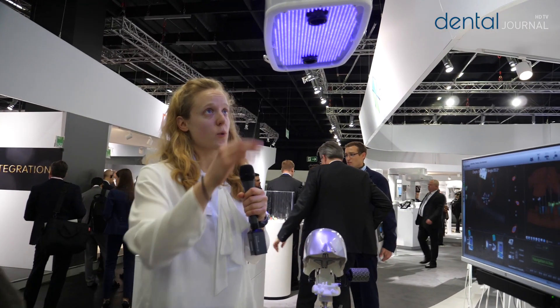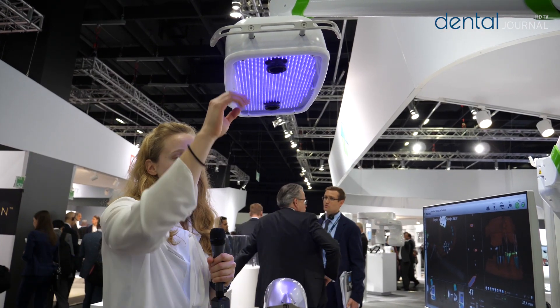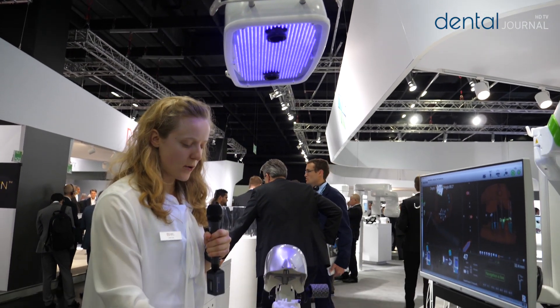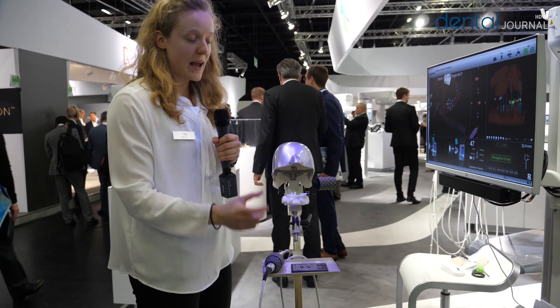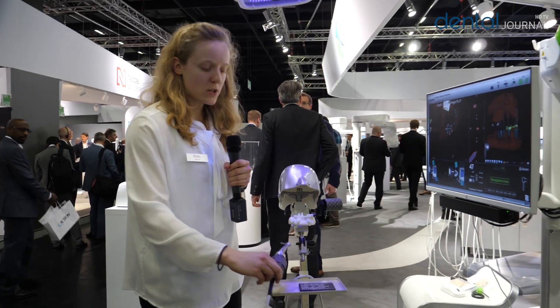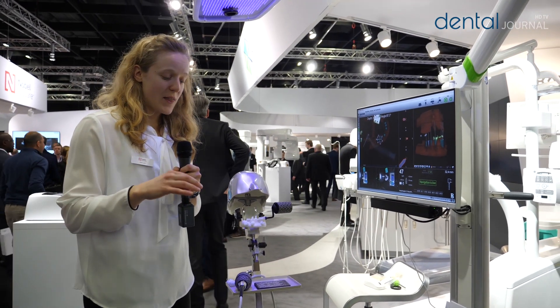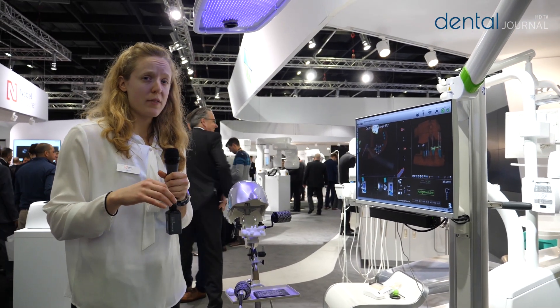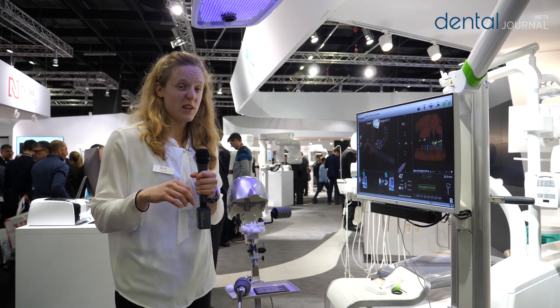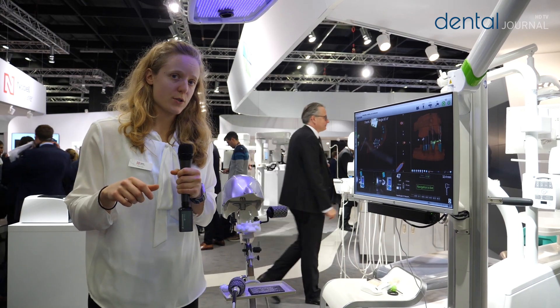This system works with two cameras. It's an optical system, and there's violet light that is actually being shown down onto these pattern parts. The cameras are capturing the position of these patterns being reflected back into the cameras. The system is accurate within 220 microns of accuracy, which means there's only an error of 0.22 millimeters.